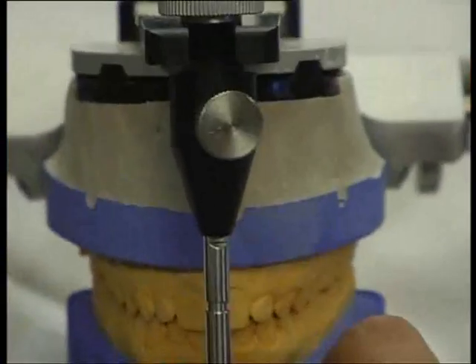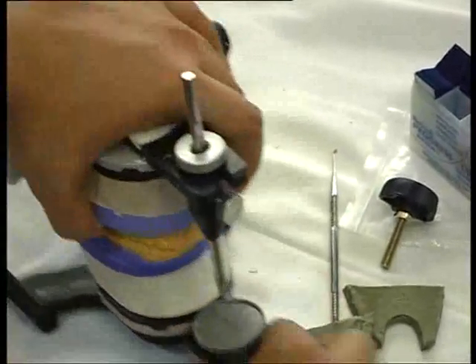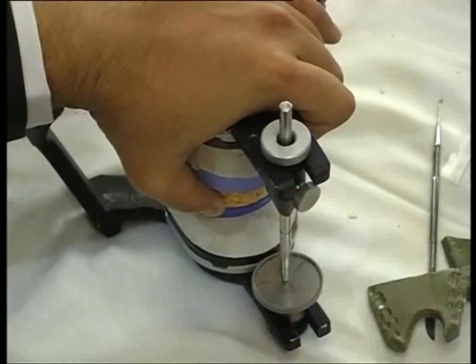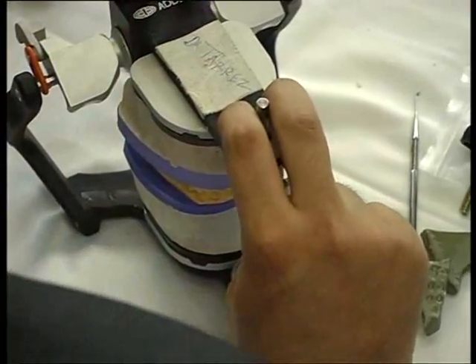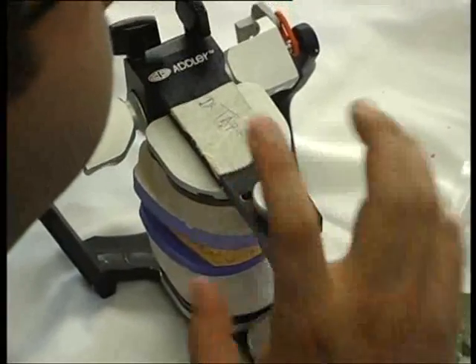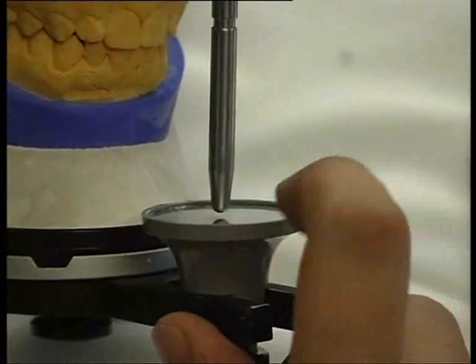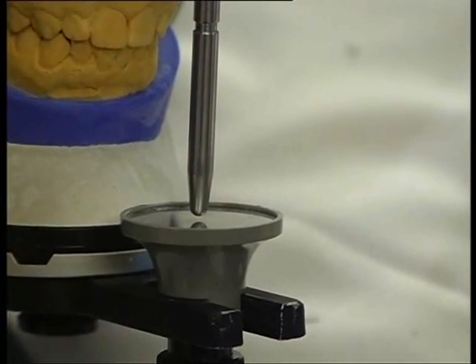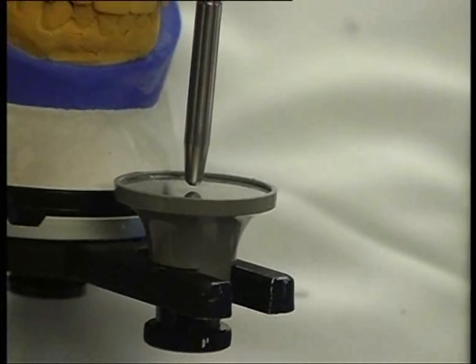But the length of the masseter muscle has decreased, which means I can increase further. To do that, you loosen the vertical pin and raise it. You then press on the articulator, which is in CR, till it goes into MIP, then drop and lock it. This is the current repetitive contracted length of the elevator muscle, and the patient is in MIP. As soon as I let this go, there will be an opening here. This opening is the amount the condyle translated upwards from MIP to CR — that is the amount the masseter length decreased further from MIP to CR, and that is the amount I can add further in the vertical direction.